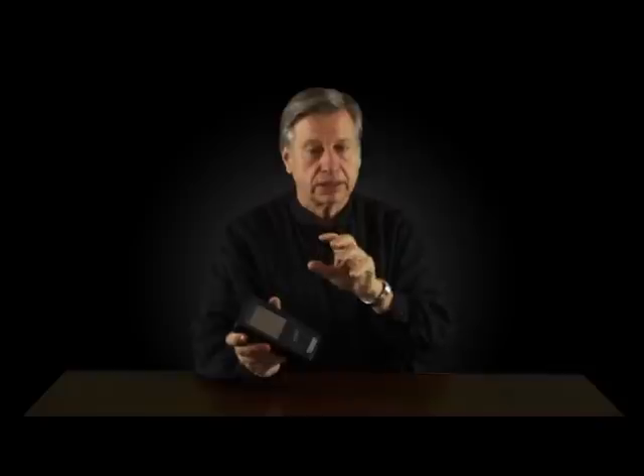And as the muscle strengthens, and as the nerves are educated, and as control is gained, you can increase that threshold so that you can go to two, three, or four microvolts of activity before they get the muscle stimulation.